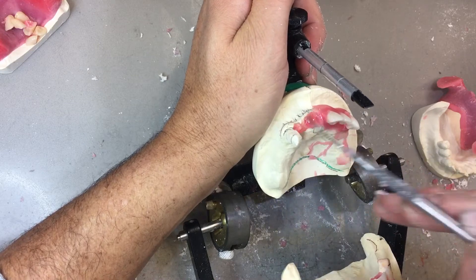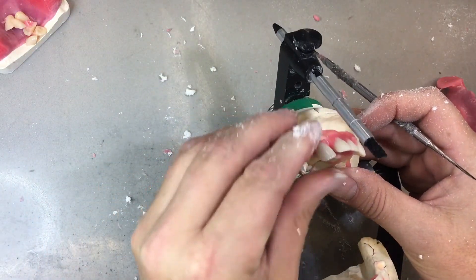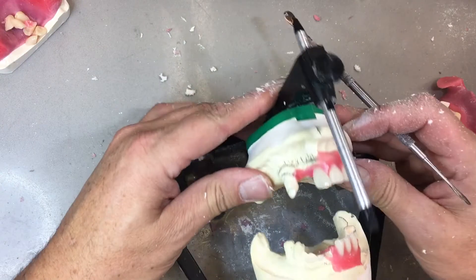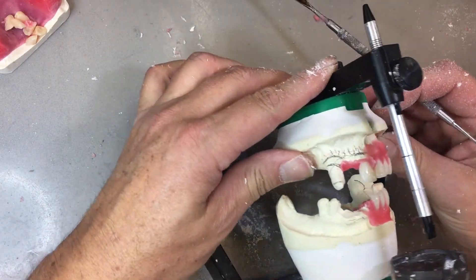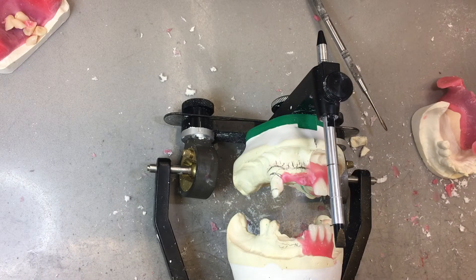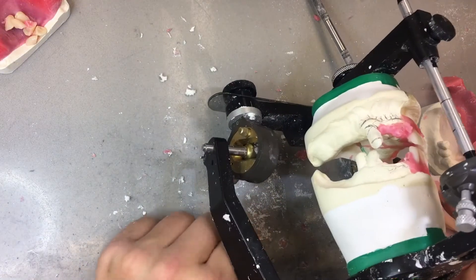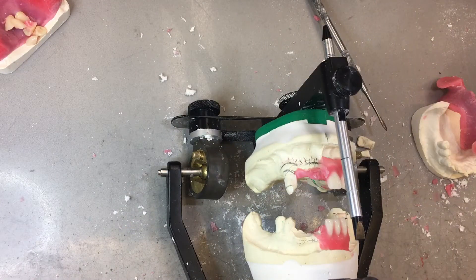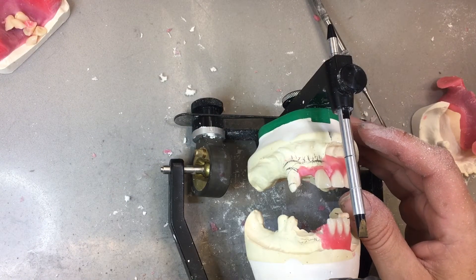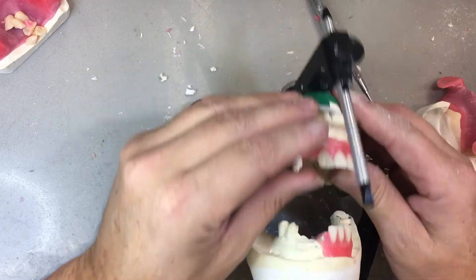So while I was talking, I was trimming the neck of the central. I put it in place at the same facial contour, but the neck is hitting the model. If I go down here, you can see one central is longer than the other — it's more extruded. So I need to go back and trim the neck a little bit more. Do not have the model interfere with the denture tooth. Sometimes when we're doing an immediate denture, the teeth look really abbreviated, almost like there's a lot of bulky plastic over the teeth. Don't do that when we have room in the wax-up.